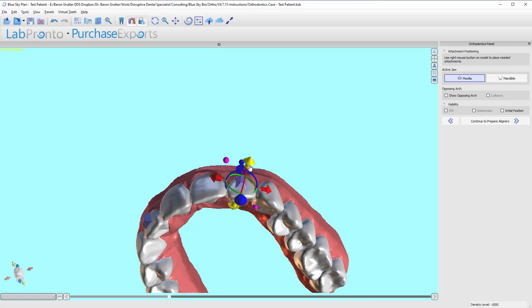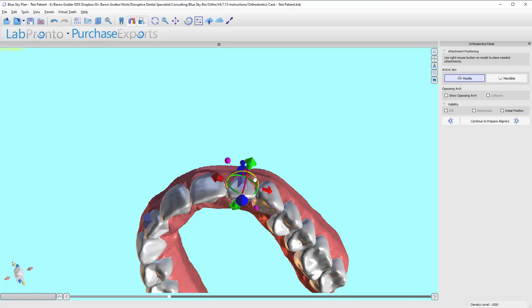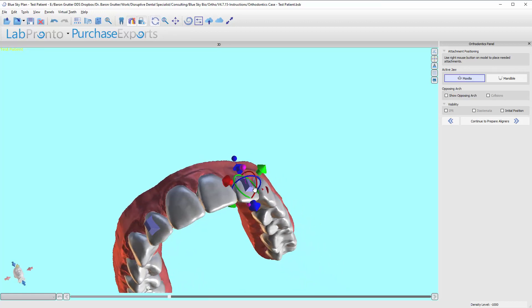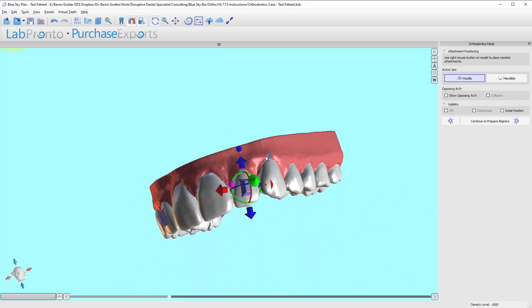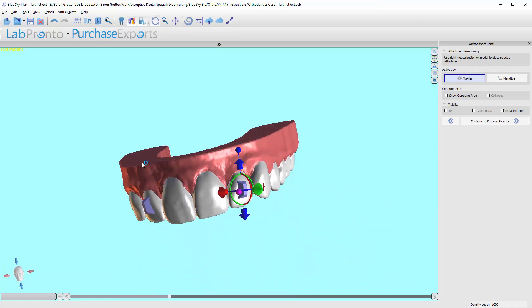Rotate that a little bit, push it in a little, rotate it even a little more. And there we go. So that's the way, that's how I would position these buttons and I'm good to go.